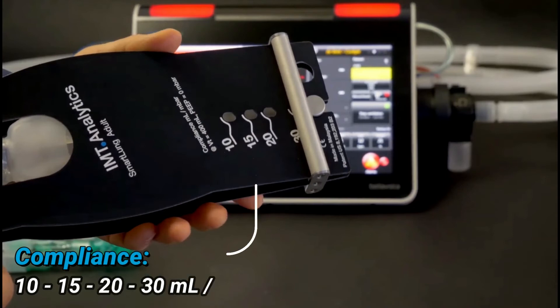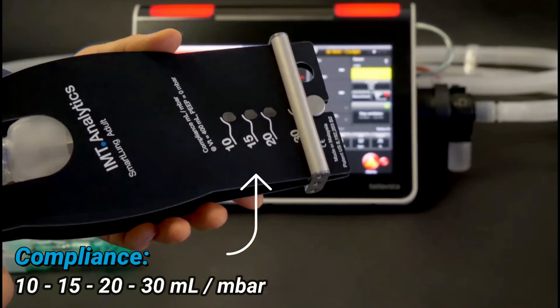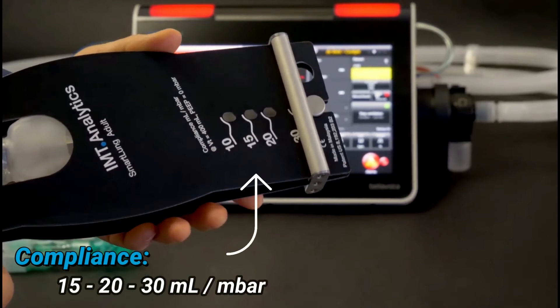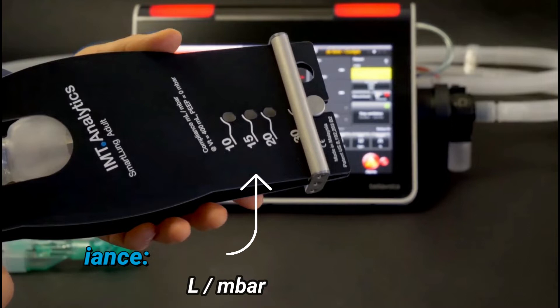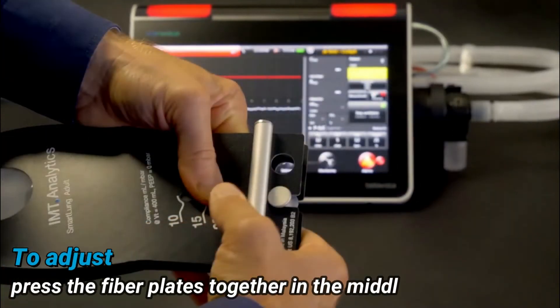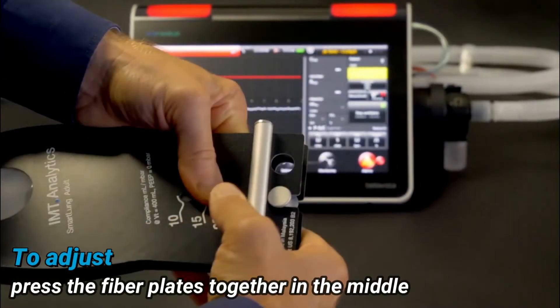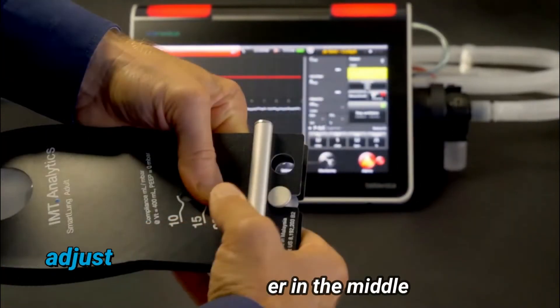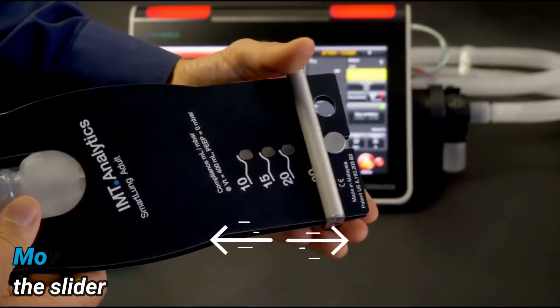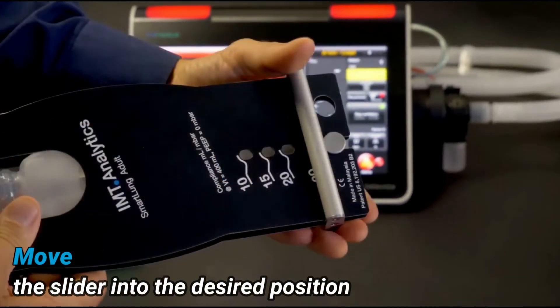Compliance can be set to 10, 15, 20, or 30 milliliters per millibar. To adjust, press the fiber plates together in the middle, then move the slider into the desired position.